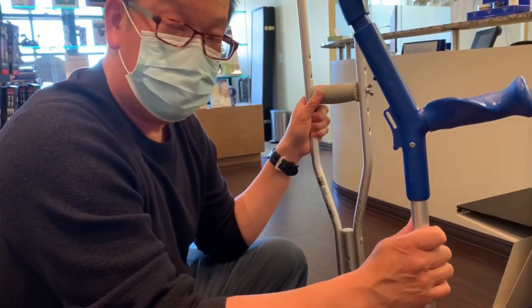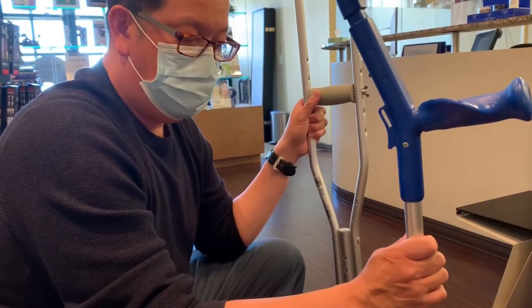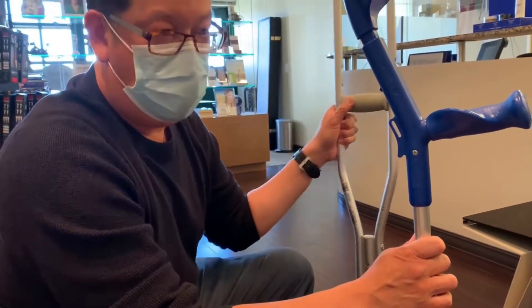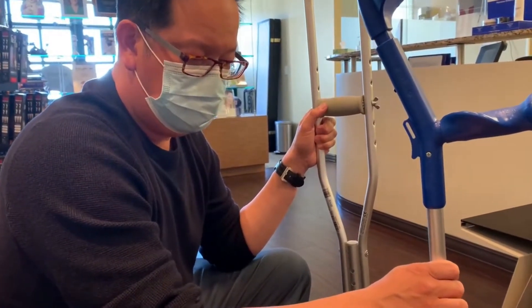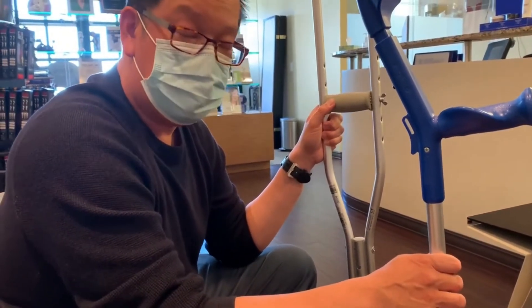A lot of people don't know how much pressure they're putting through their foot when they're trying to rehabilitate. You can use scales, you can use the weight of their body minus how much pressure they're putting through it, but this gives you the instantaneous feedback which I think for rehabilitation purposes can be very helpful.